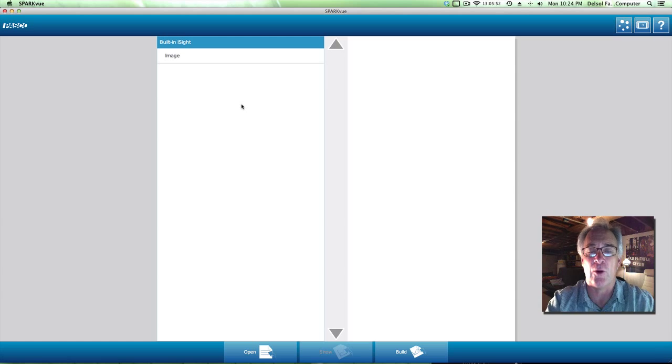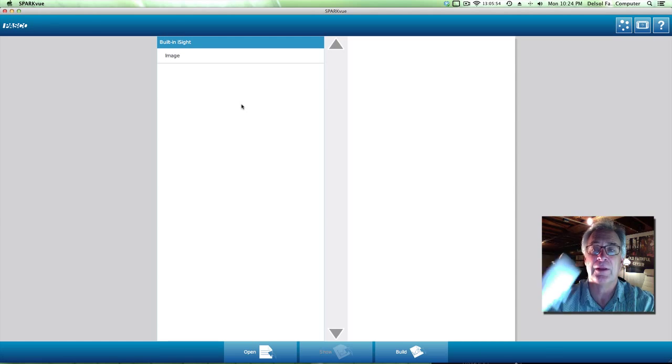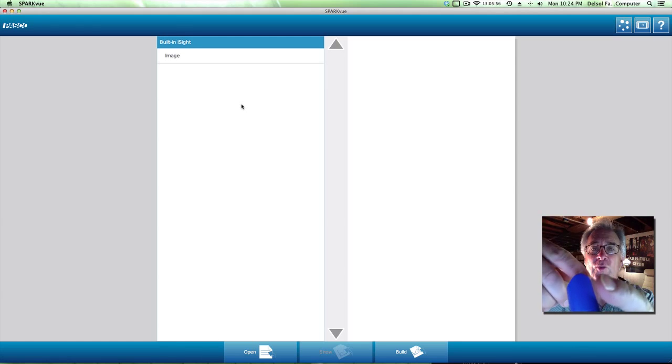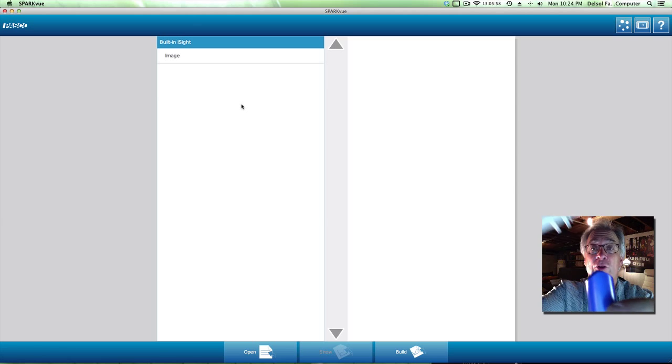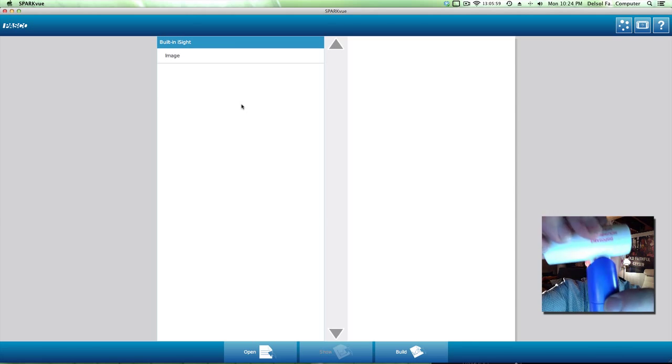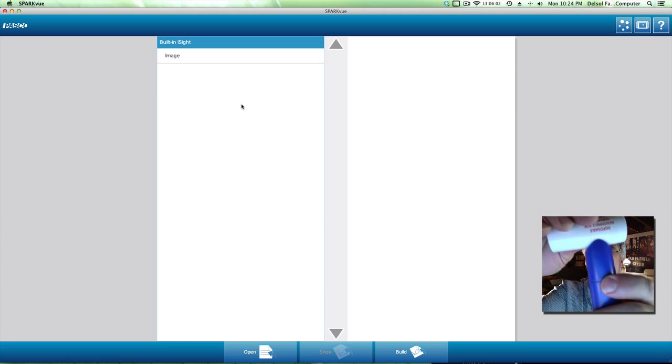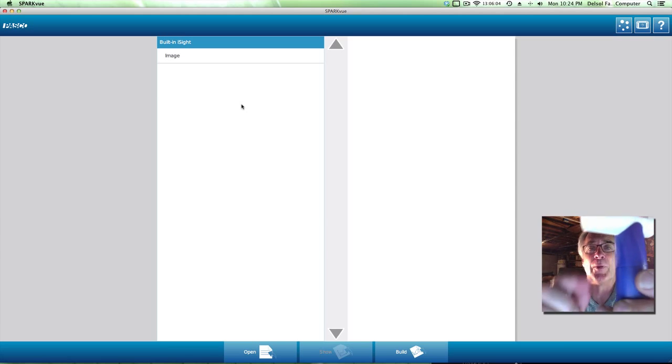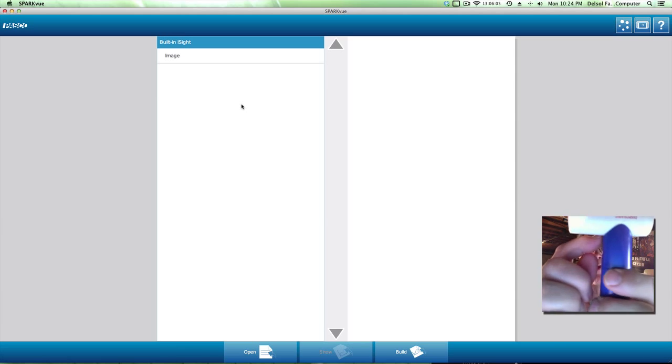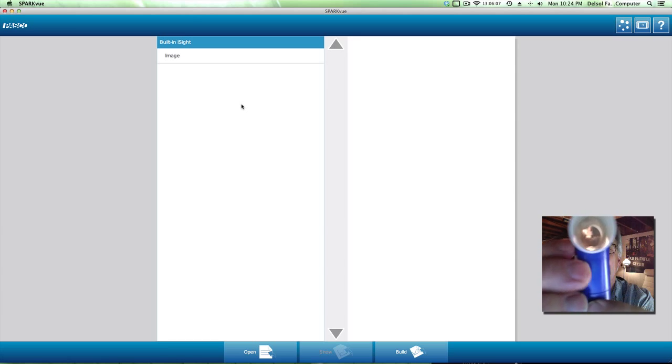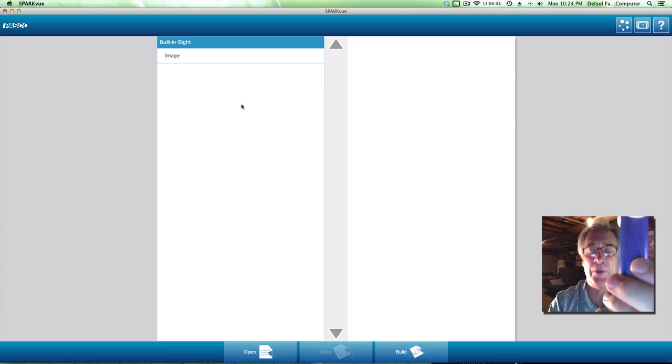So we're going to line this up properly. We're going to make sure this finger goes into the small hole next to the two large ones and we're just going to be able to seat it just like this. And if you seat it properly, the handle will fit nice and securely around the mouthpiece.